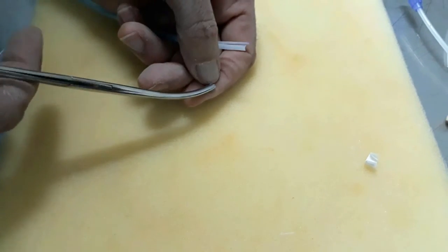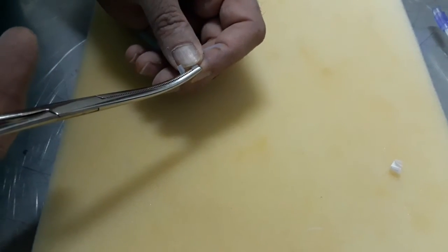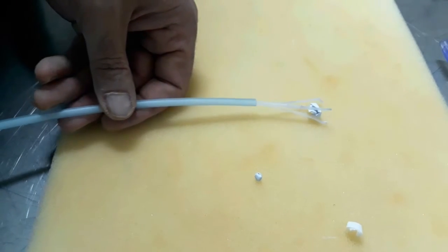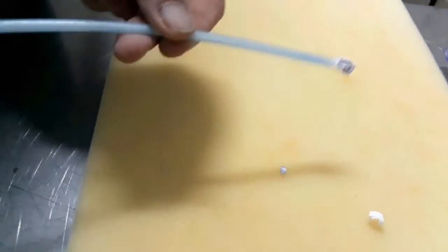The tips of the three prongs are incurved medially with forceps. It is tried with a ball of paper. The three prongs easily and securely catch the ball.